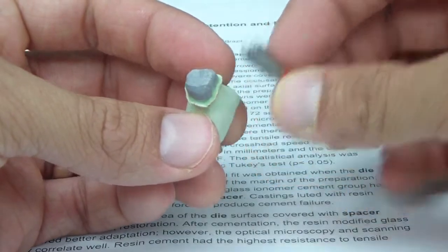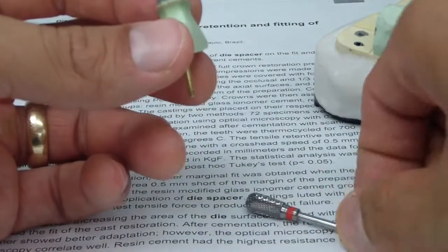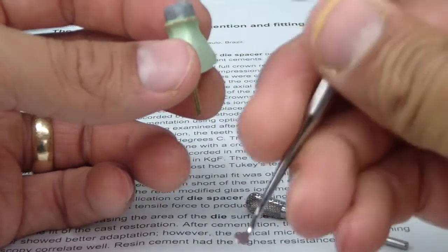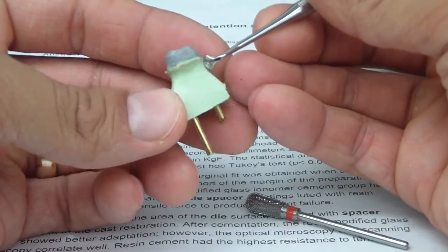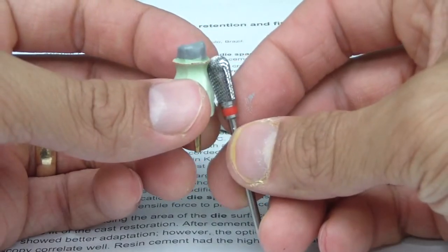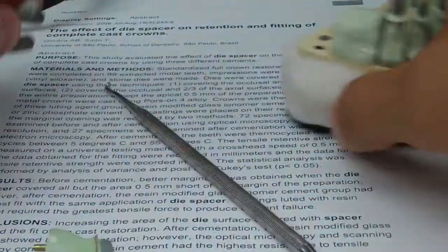And ruining your margins — you can see it there. So that's a great little bur for trimming margins. And then additionally, using a large discoid cleoid — there's a whole bunch of different instruments — use whatever hand instrument to get in there and get that nice contour. We've got the pear-shaped bur and the discoid cleoid, and we did that for all the preps.